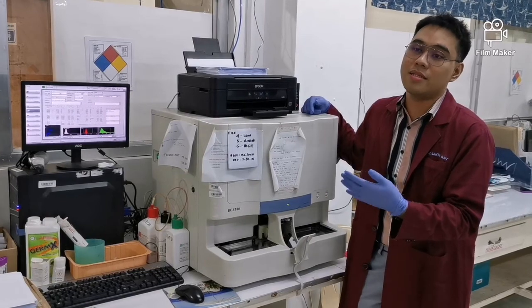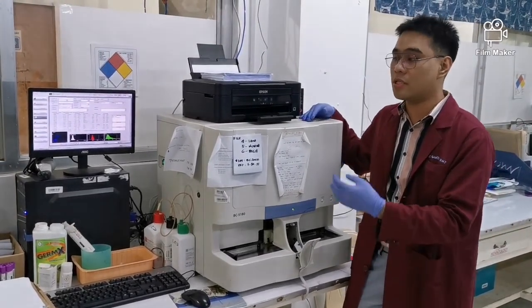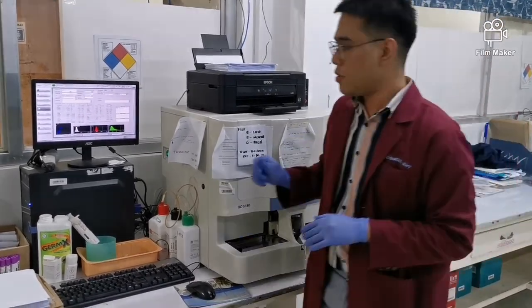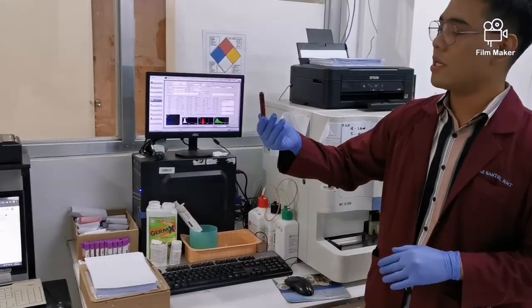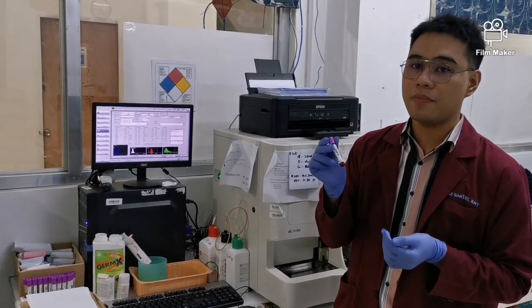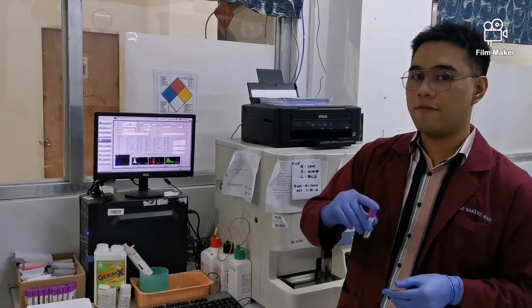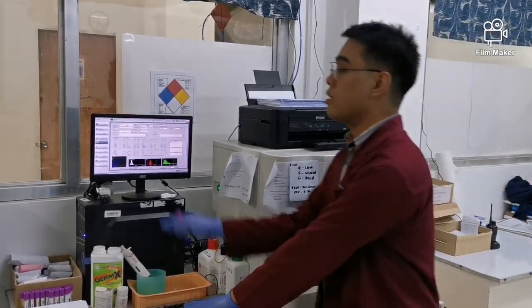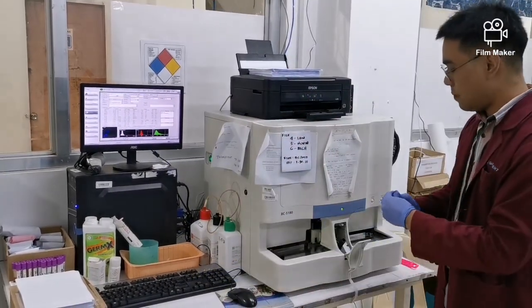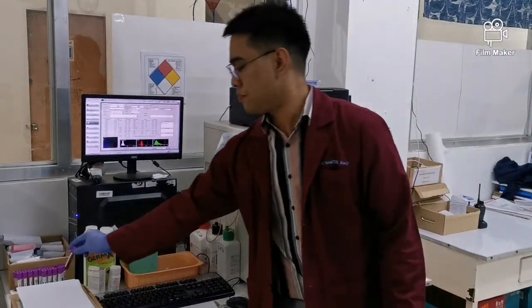Later on, you will know what that principle is, but I just want to reiterate that it operates under electrical impedance, wherein there is a disruption of the electricity as a cell passes by. So this is the sample you see here in hematology, the violet top, which has an anticoagulant of ethylenediaminetetraacetic acid, okay? So you do 8 inversions, and then enter the data of your patient and insert the sample. Close it and then push the run button.